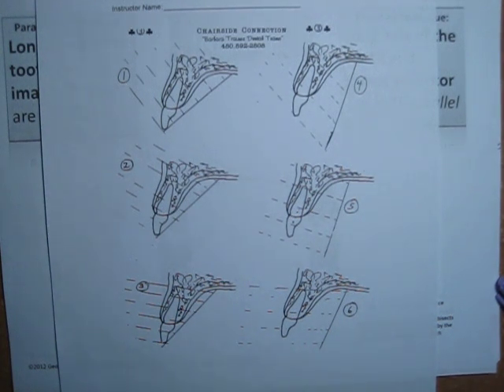Today we'll go over the difference between the bisecting technique and the paralleling technique in dental imaging. This is specifically for Rio Salado CD240 class, but the concepts can be applied in any other dental imaging class.